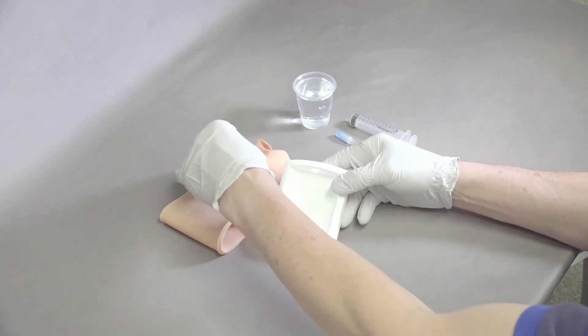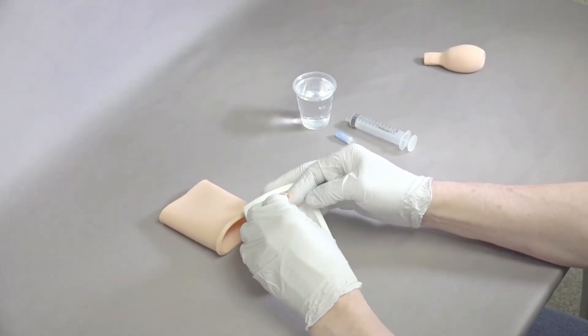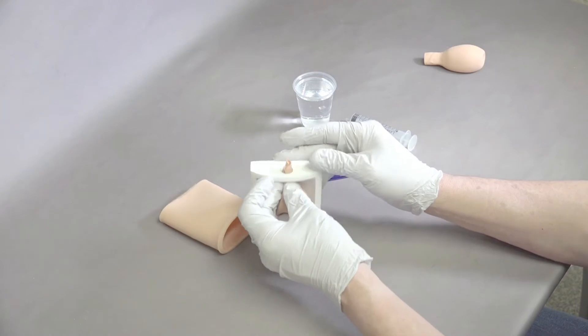The best way to set this up is to take one of the bladders, fold it over on itself, and place it through the hole.